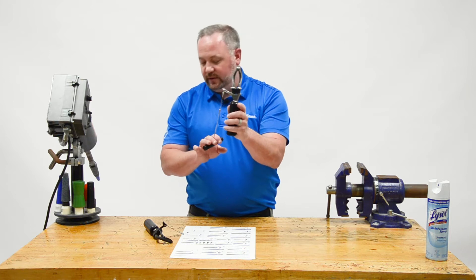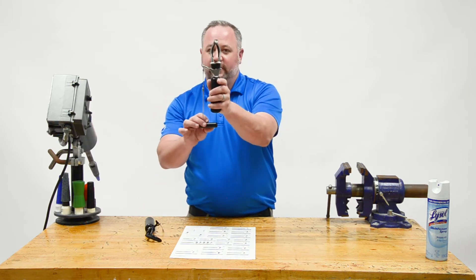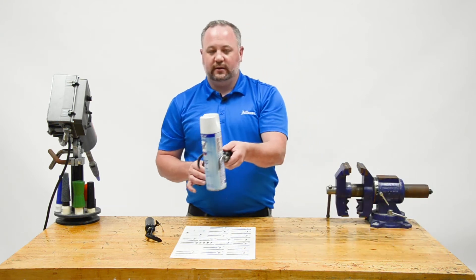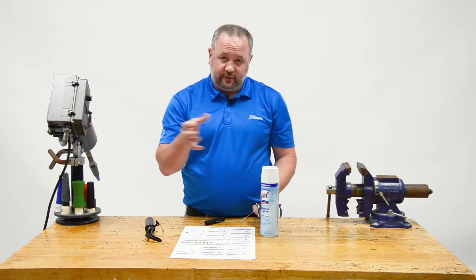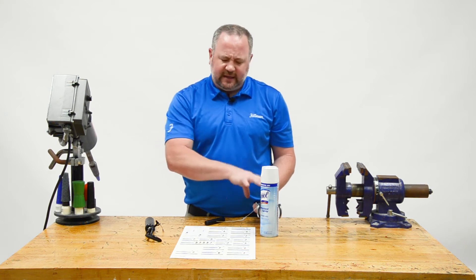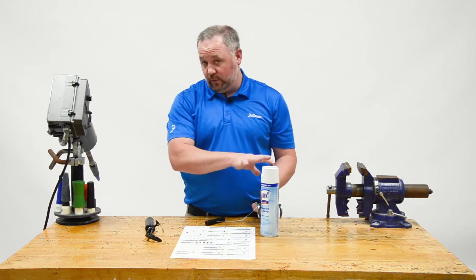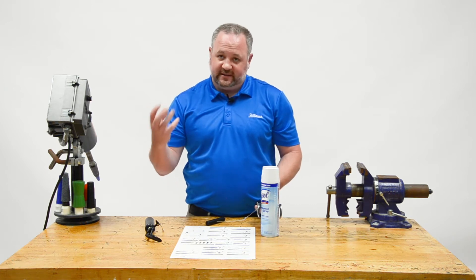Now let's look at the 555 hook. Where the 5XA is a canted hook, the 555 is a lyre-shaped hook, and what that gives us is a cylindrical-type grasp. So if I want to grab something like this bottle, I can get a hold of it because I'm using a cylindrical grasp. A cylindrical grasp is really great as a supporting device — this is going to be your non-dominant style hook, where I'll reach over with my sound hand and do whatever I need to do while this hook supports the object.